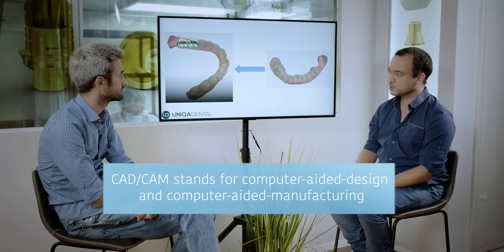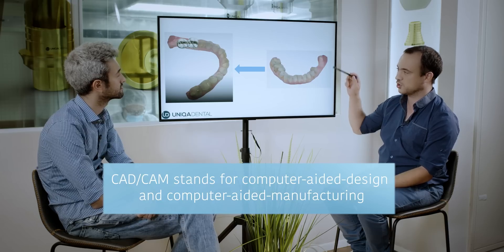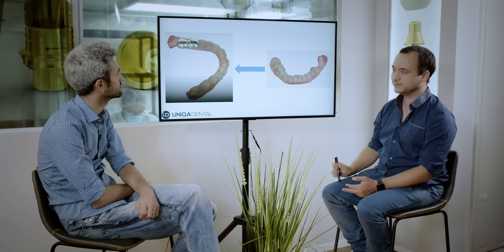In this case we're doing everything in CAD-CAM on the computer. We design the crowns in the computer — I have the jaw, and in this area I design the two teeth I want to exist in the future. I have the morphology and the anatomy of the teeth. Now I know the shape of the teeth, and from the shape of the teeth I know where the implant should be. From the place where the implant should be, I can now make the implantation itself.